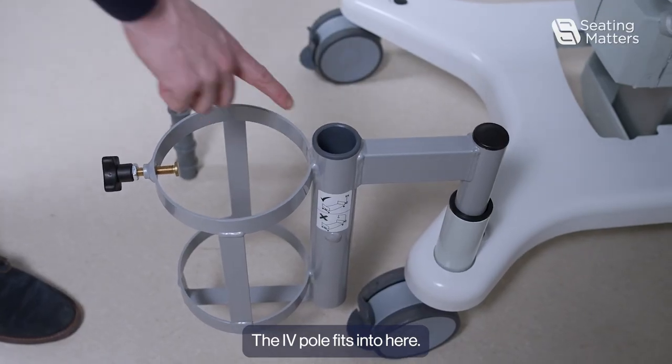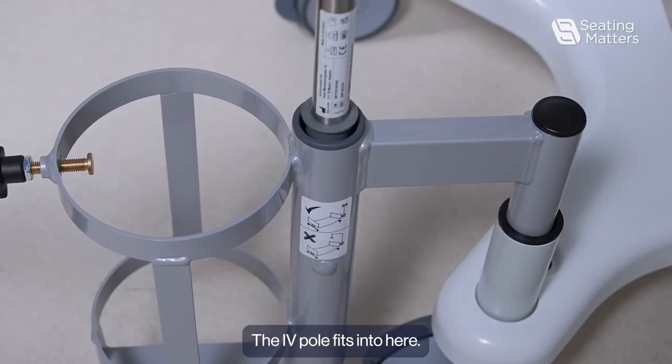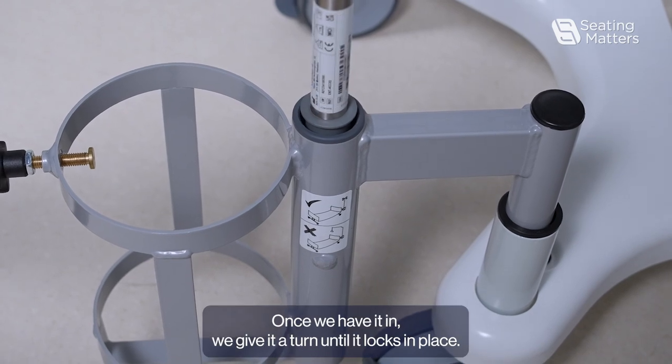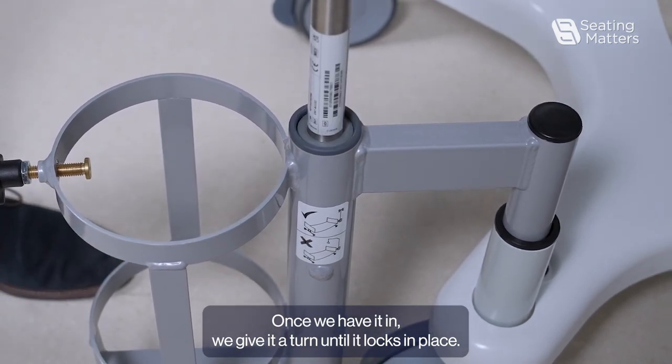The IV pole fits into here. Once we have it in, we give it a turn until it locks in place.